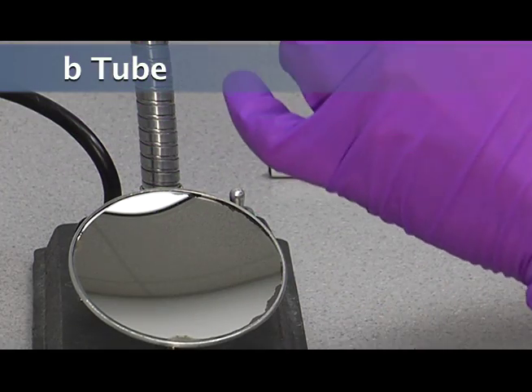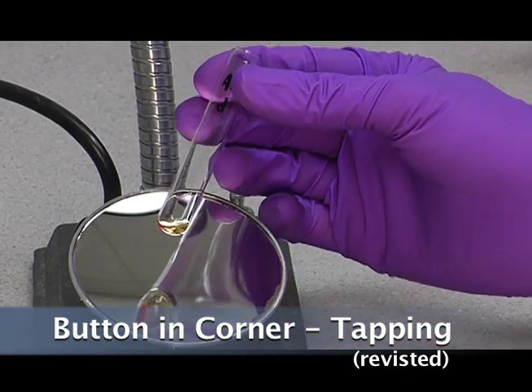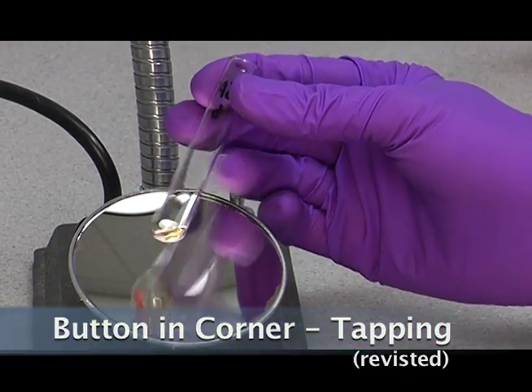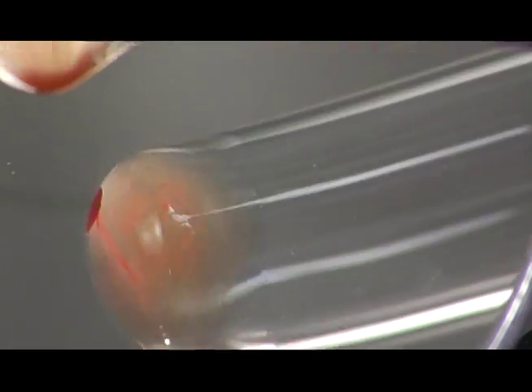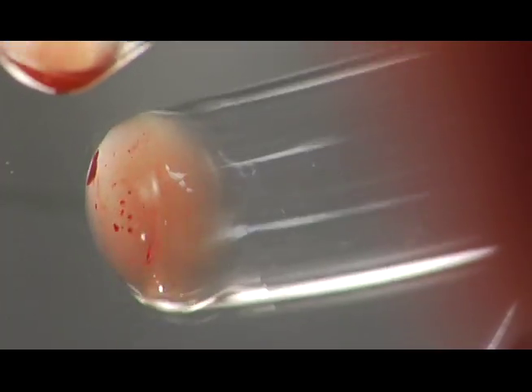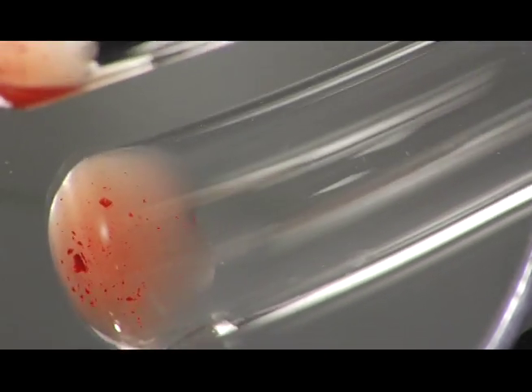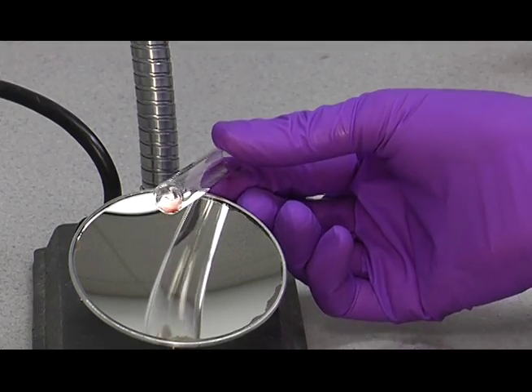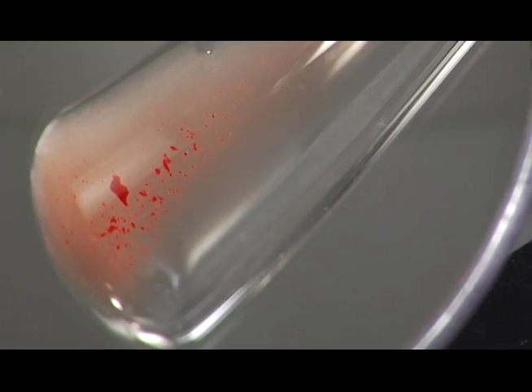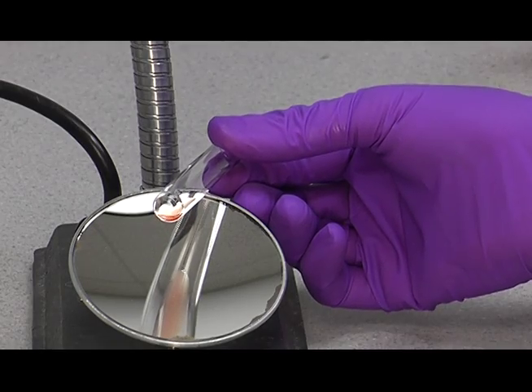And then the last two. We would expect positive on this one as well. So let's go and we'll give it a little tap. Now this one you can see is a little weaker reaction. In fact, actually it looks like we're getting just a little chunking off the button. This is quite a bit weaker reaction. It looks like a 2+. See the agglutinants there?